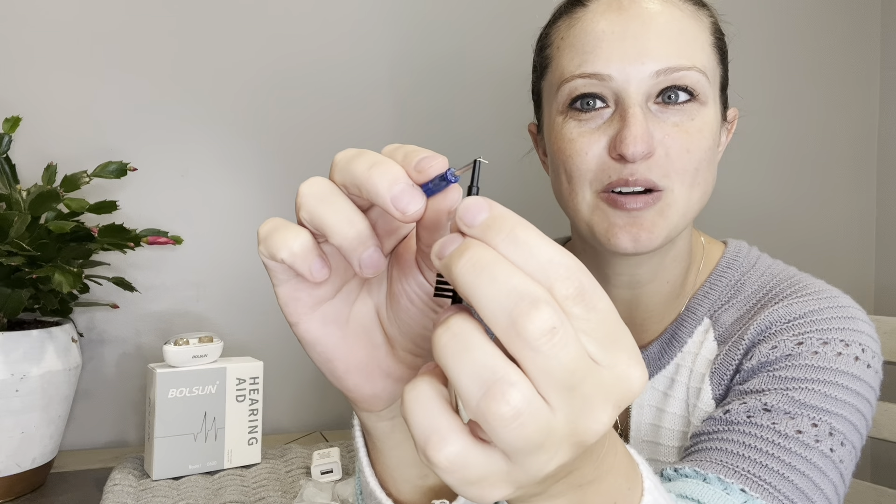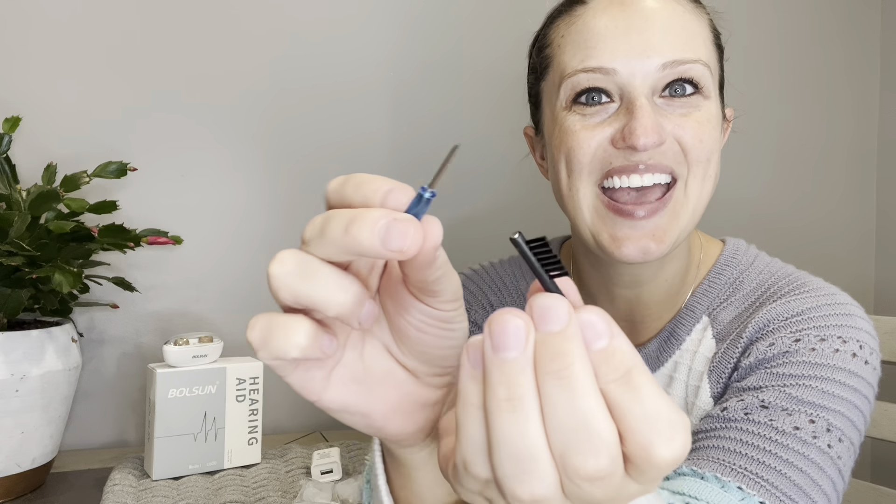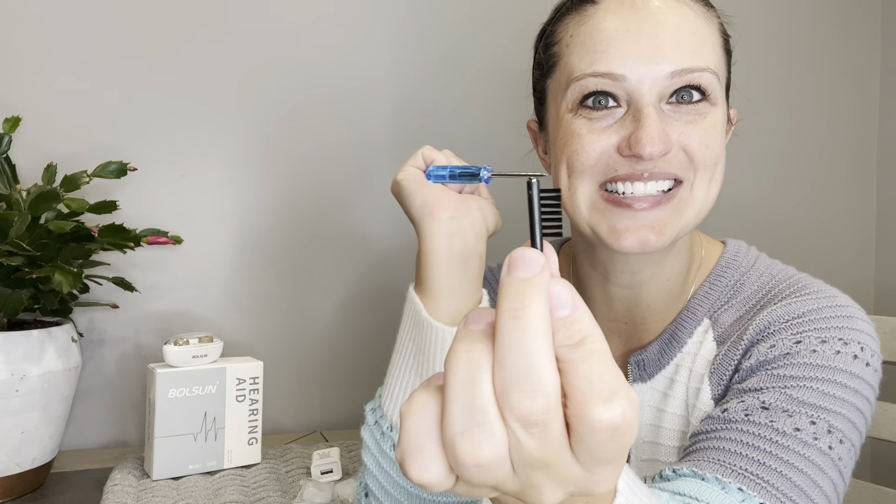In this set we're going to get our USB charger and plug-in. You're going to get multiple ear replacements in different sizes, and a mini screwdriver with cleaning brush. It has a great little metal hook on this end for getting those hard to reach places, as well as a magnetic end on this side.